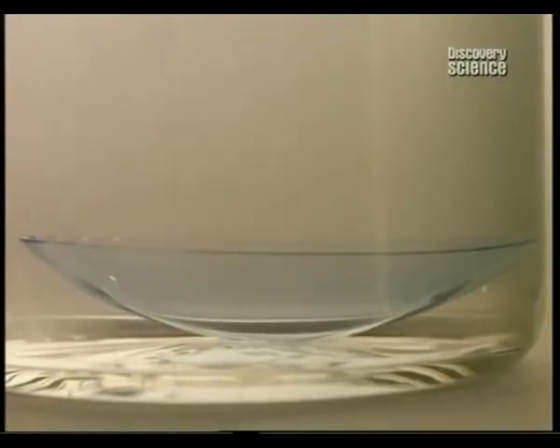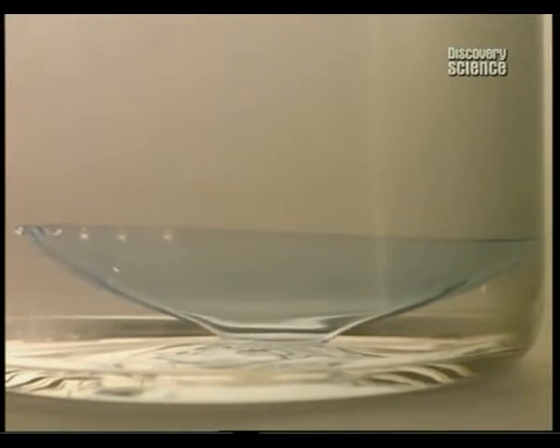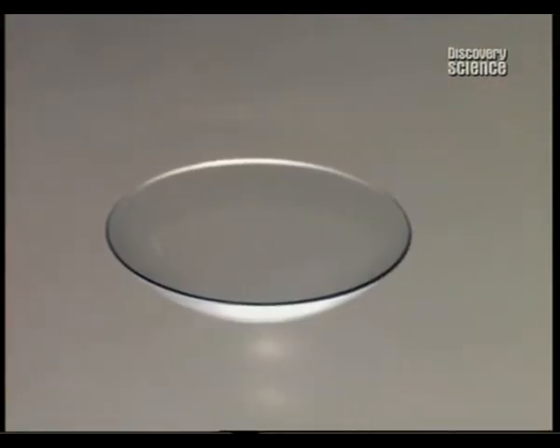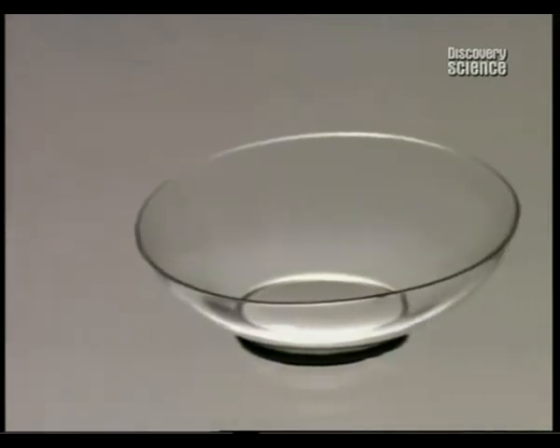The polymer is then hydrated to make it flexible. The lenses remain immersed in a balanced pH saline solution for 24 hours. The lens becomes engorged with liquid and expands, reaching the desired proportions.